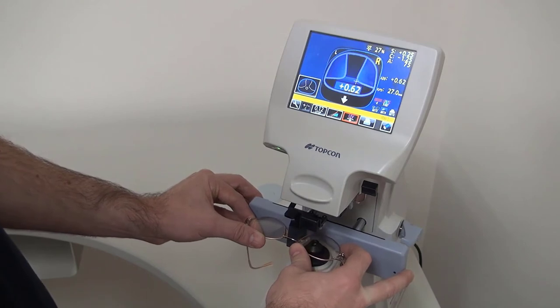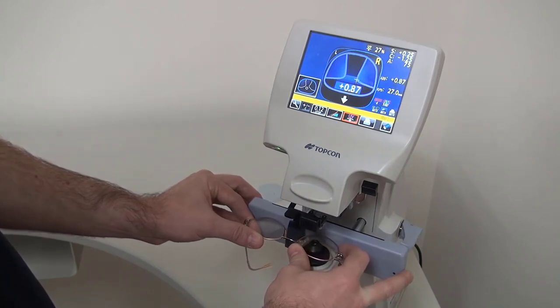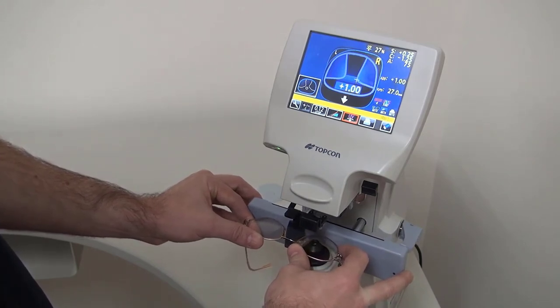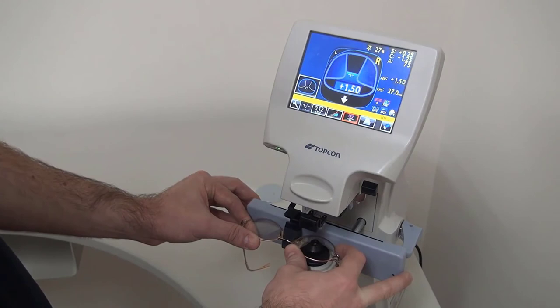So then I'm going to pull it back, follow the arrow, and once I see that cross on the screen in the near channel, you just try and keep that centered.